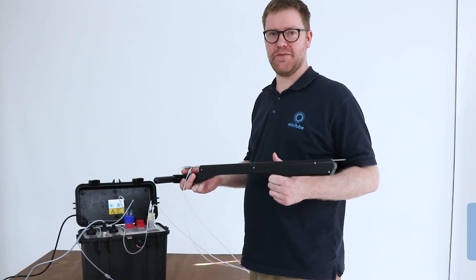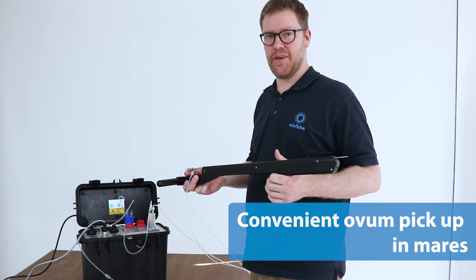This Minitube system provides a complete solution for convenient ovum pickup in mares.